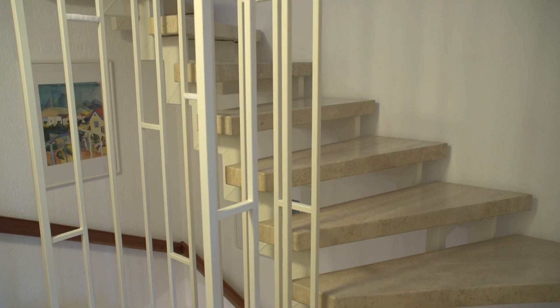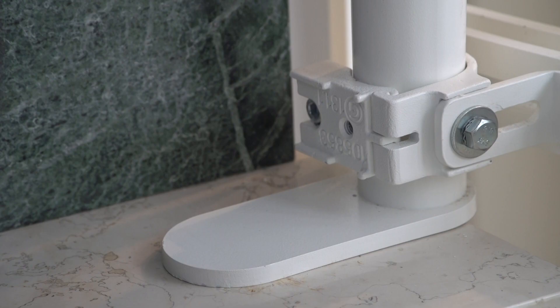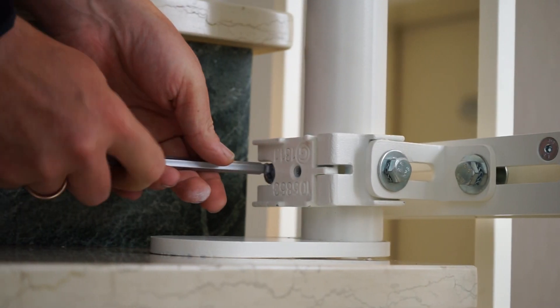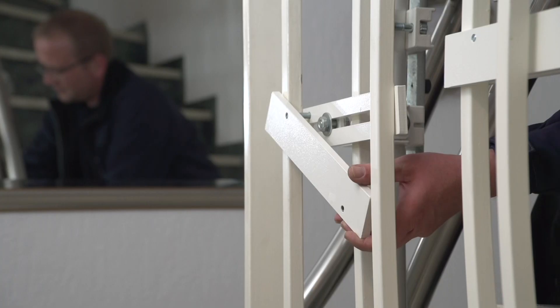Hero Lift mounting option four: harp mounting. With harp mounting, the supports are simply placed on the steps to absorb the total weight. The stability of this design comes from a clamp mounting used for connection to the stair harp.